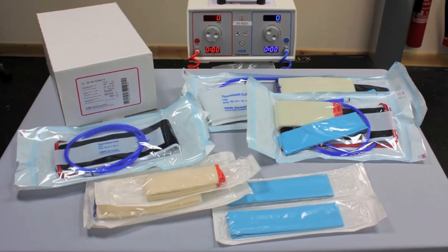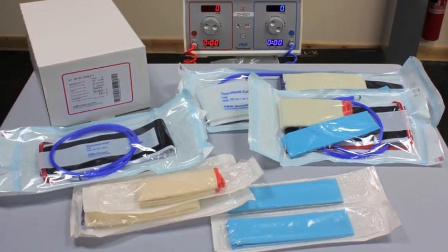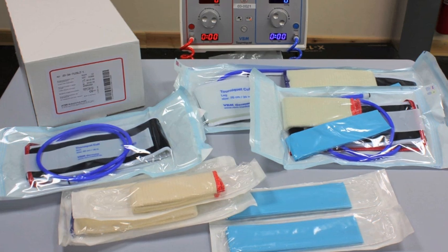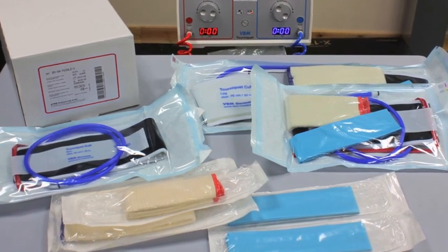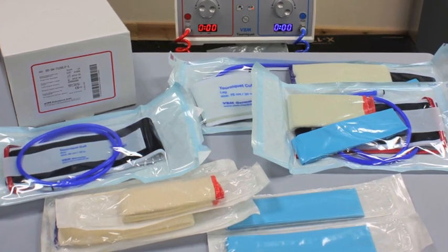Available as individual items or as a complete pack as featured in this video, the VBM range of disposable tourniquet cuffs and accessories provide ultimate patient protection.